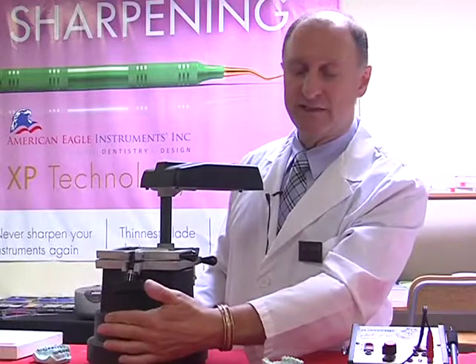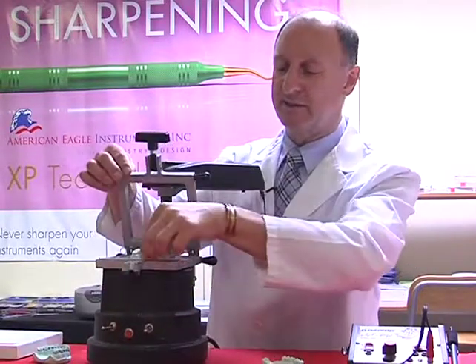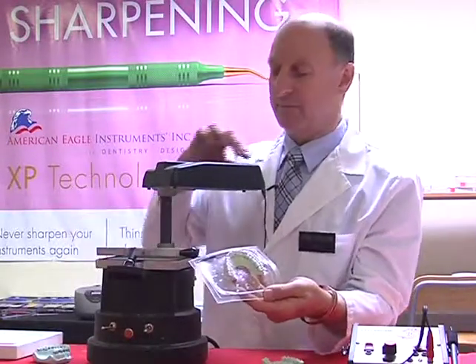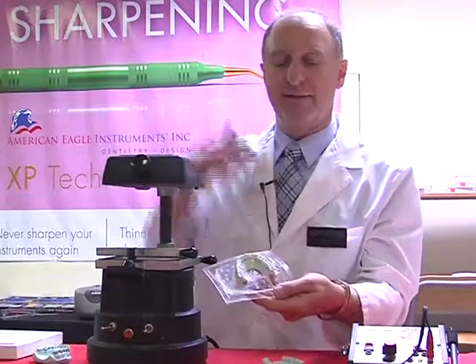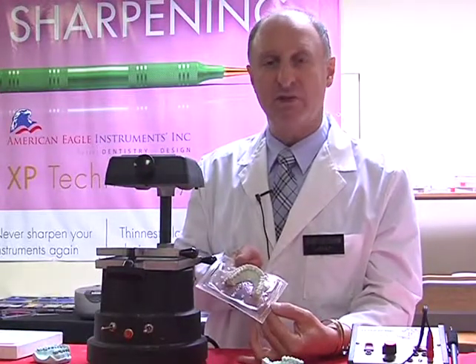I turned off the heater, I turned off the vacuum, and now I can release by pulling this upwards and removing our vacuum formed bleaching tray. At this segment, we're now going to show how to trim a bleaching tray.